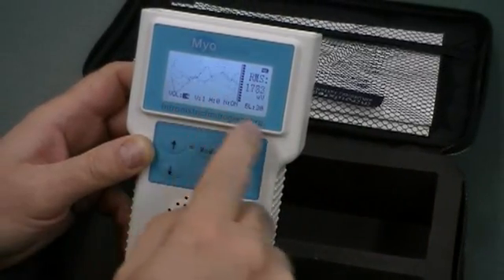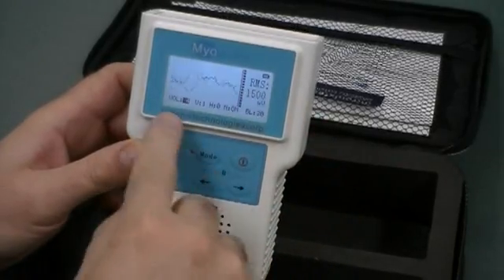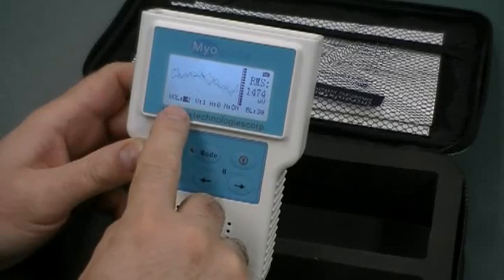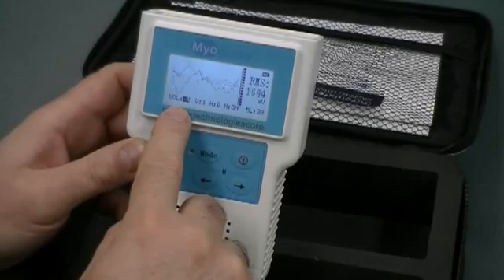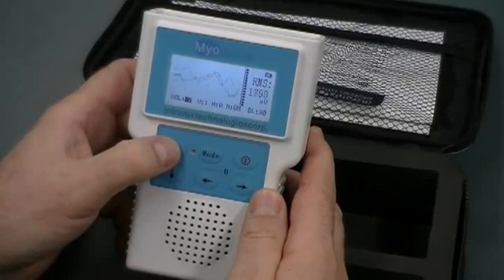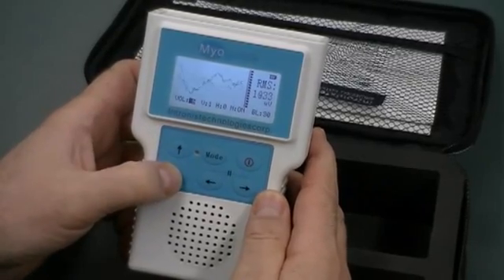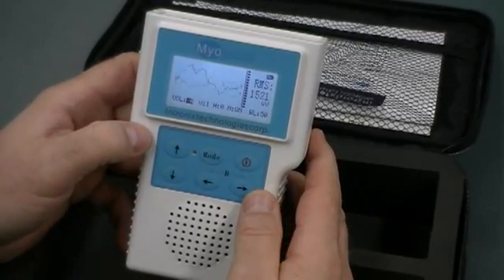Okay, now when you turn the unit on, as we said, it defaults to EMG mode. It also will default to a volume level of four. That's the EMG audio volume. Now you can adjust that louder using the up-down keys. So let's just leave it at four. That's acceptable for this round.